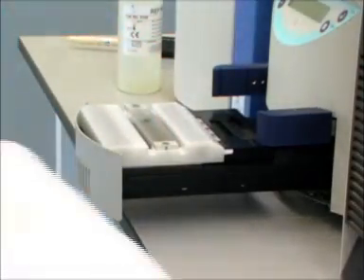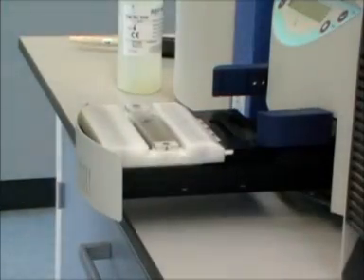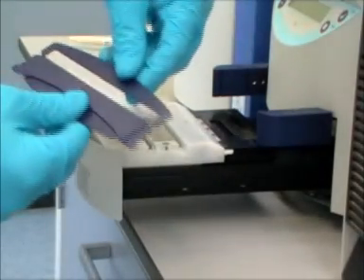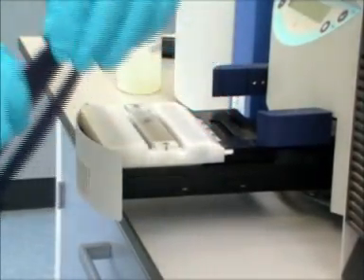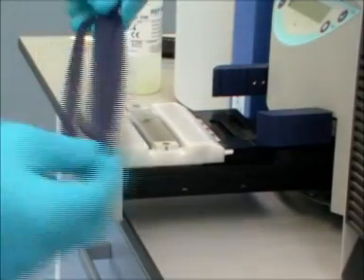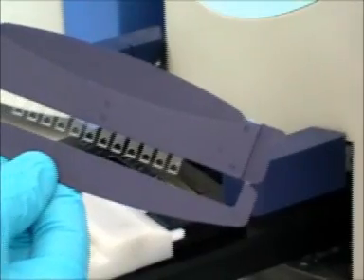The samples now need to be applied to the gel using a sample comb. The bar protecting the sample application teeth is removed.